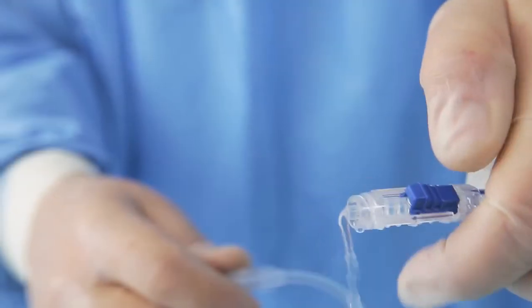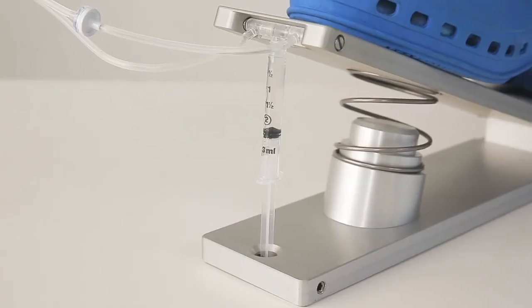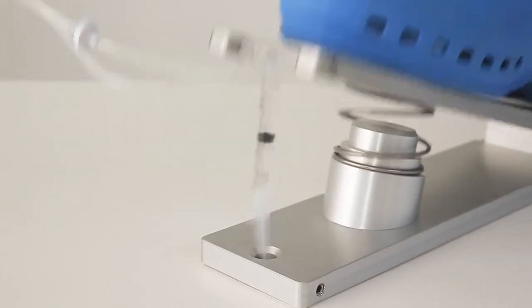Pumping against an inadvertently closed inflow switch or any other tap will result in breakage of the plunger rod.